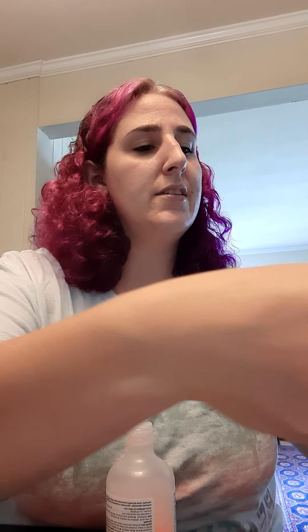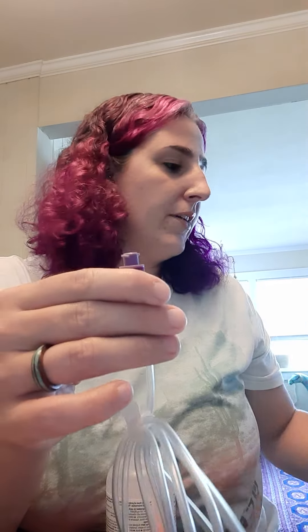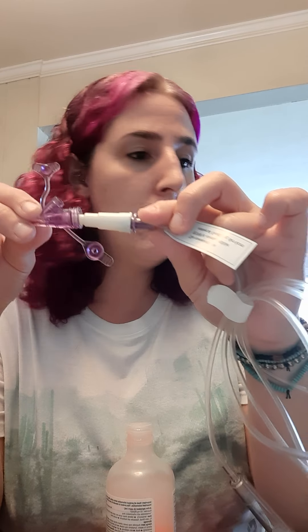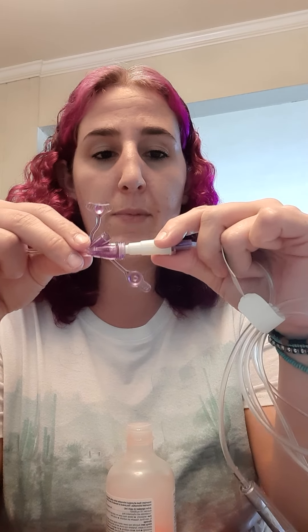If you open your bag — this is the Gravity Bag — there's a spot where a white piece is designed to plug in. The bags have not changed; I'm not sure why, but they're still coming with this white piece. That may change in the future, but so far it hasn't. With the new extension, the old white piece doesn't work directly, so I'm not sure why they're still sending it.